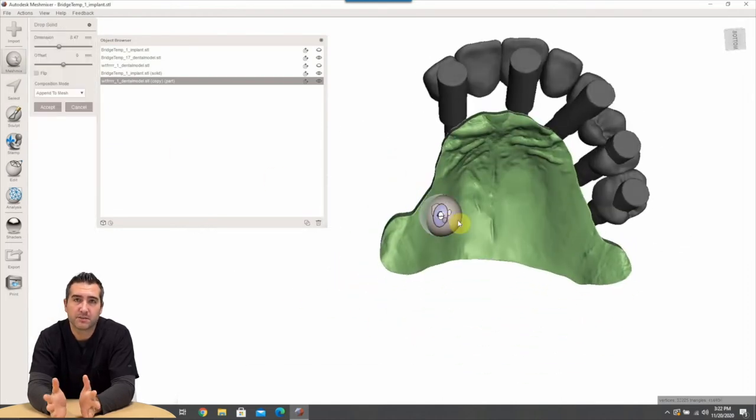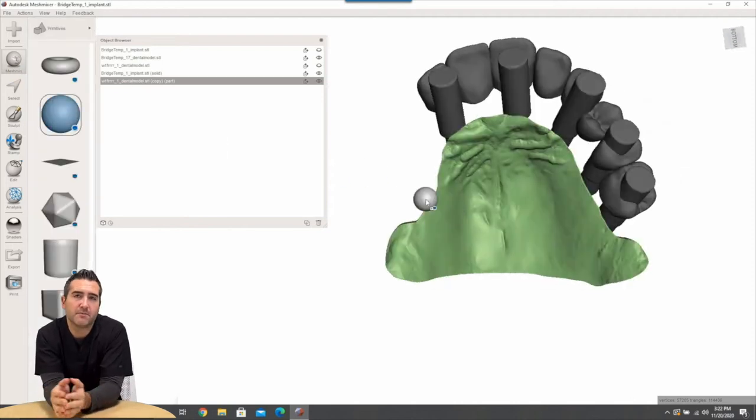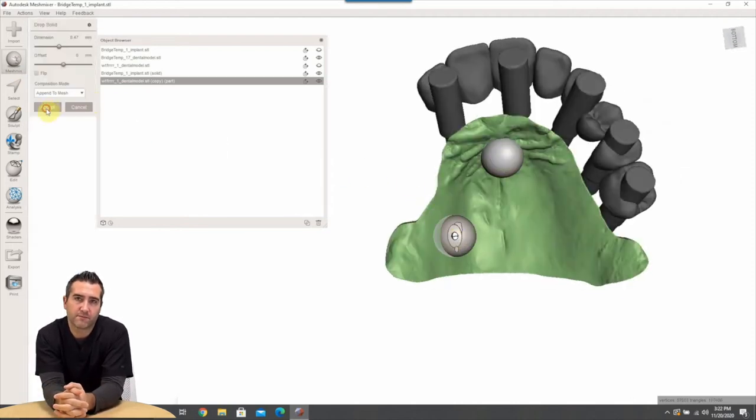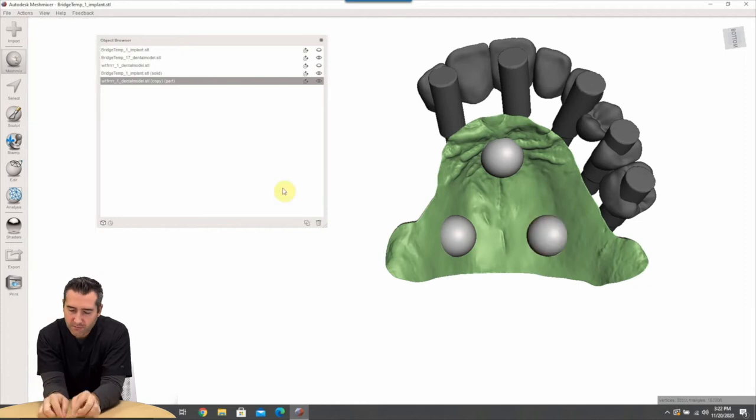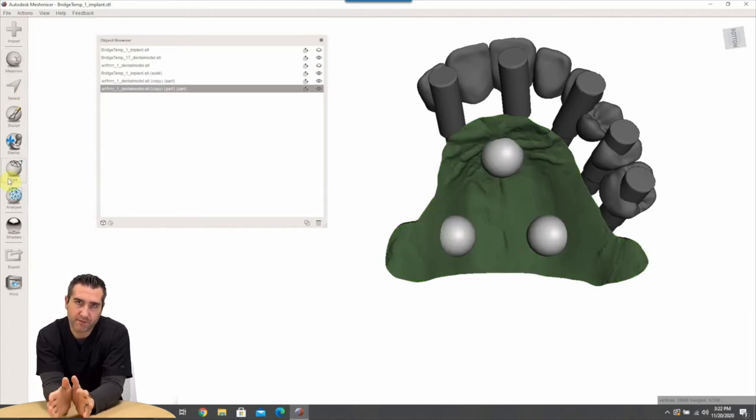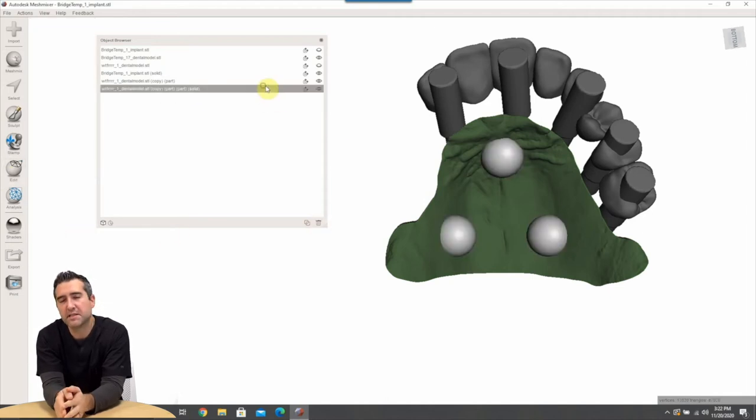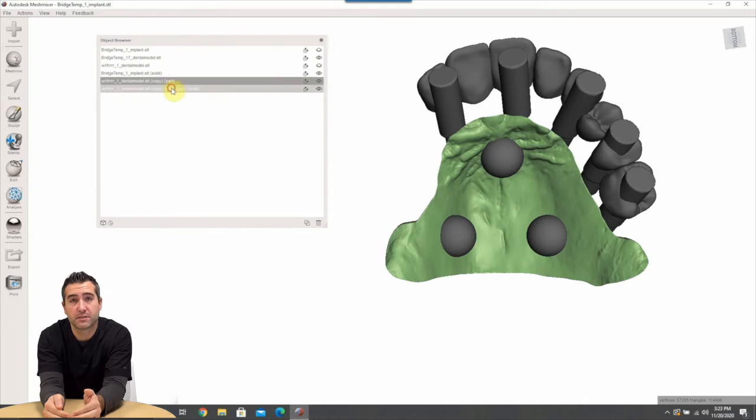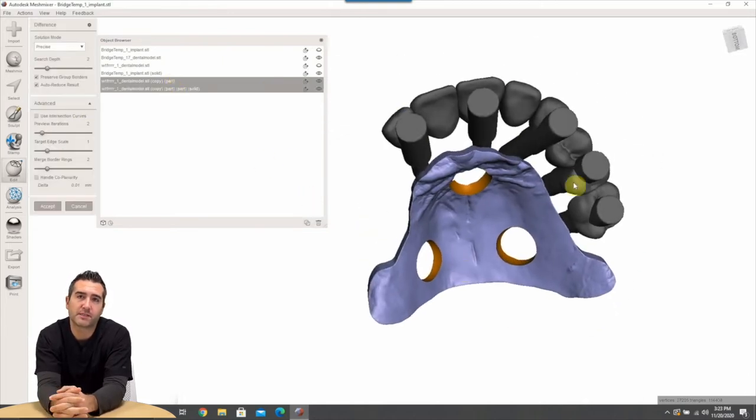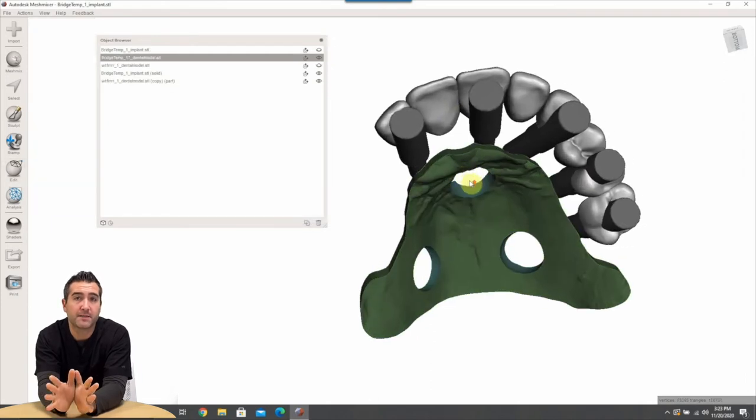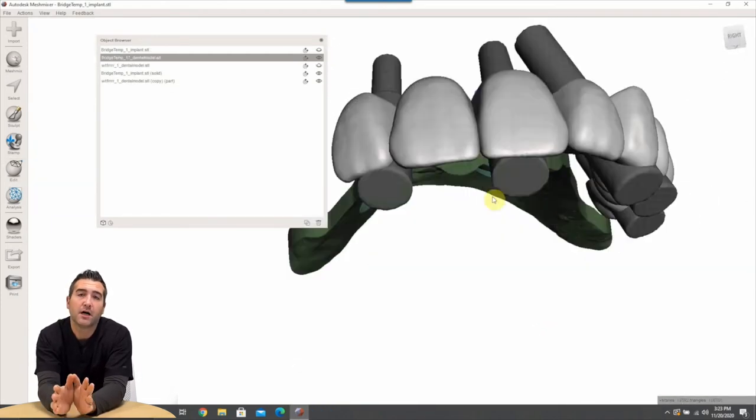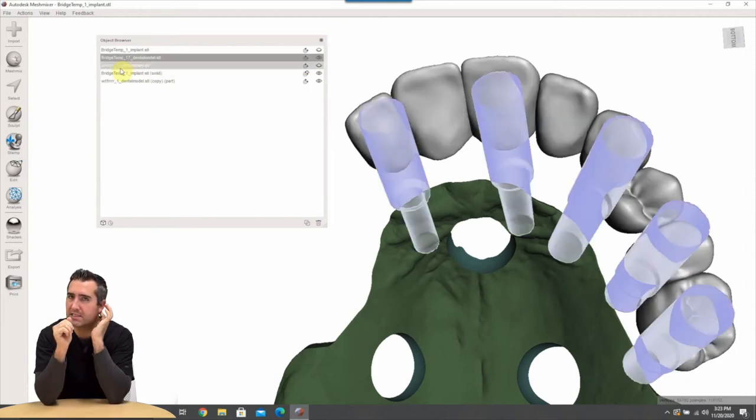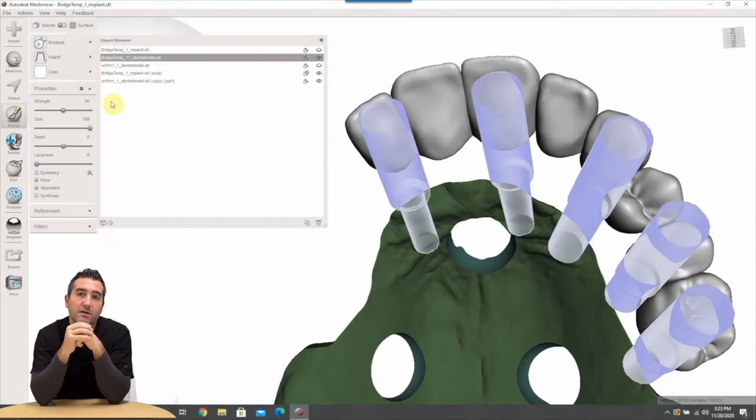Now this is an extra step, maybe not needed, but you could go ahead and drag the default balls in from Meshmixer, double click them and separate them into one file, combine them and then boolean difference them from the palate. So select the palate first then select the balls and hit boolean difference and you're going to cut holes in that palate that will help you verify that the palatal jig is seating on pickup and go ahead and pick these up.